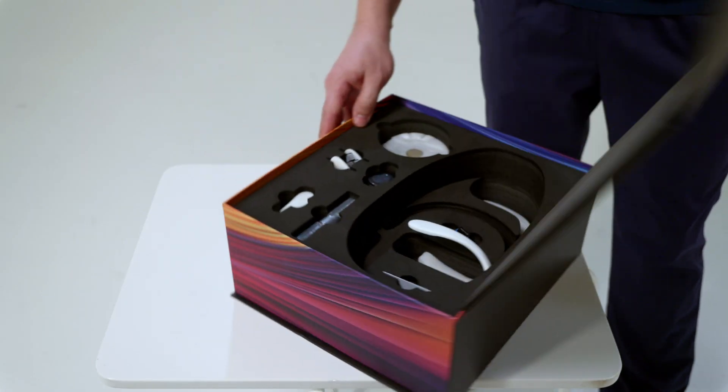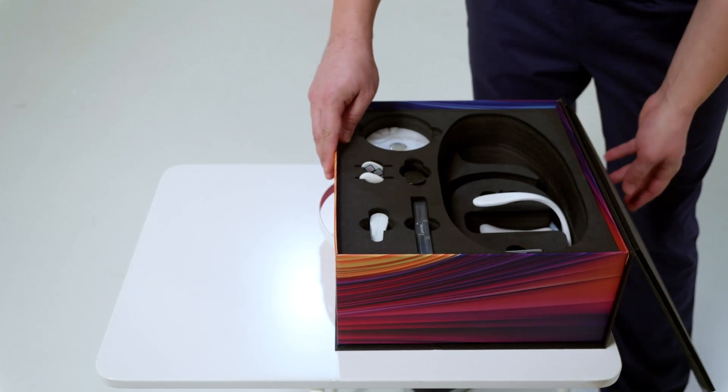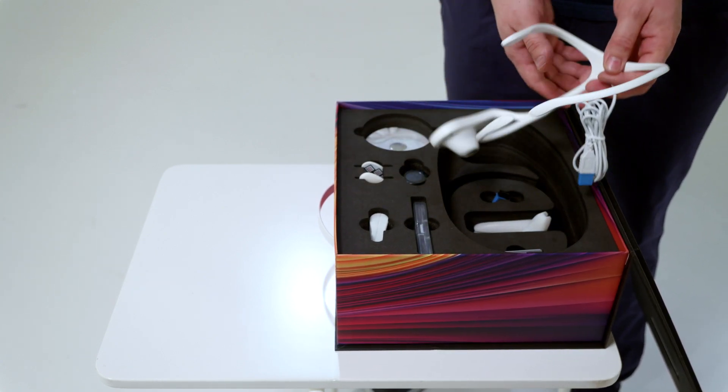A Set of Equipment for Functional Diagnostics. ProAxis Device Included.